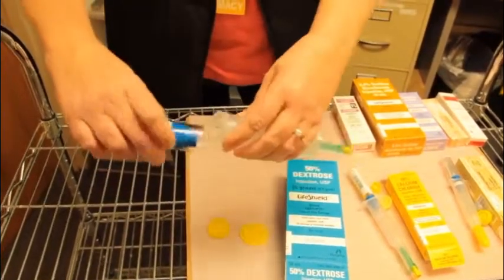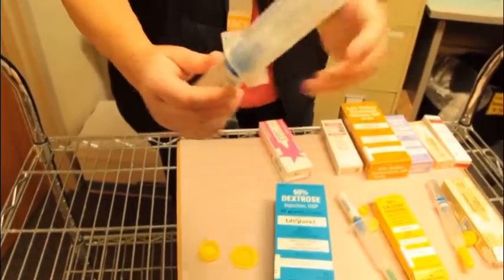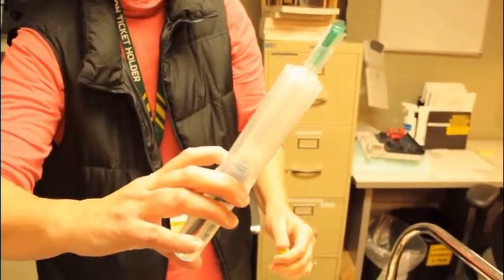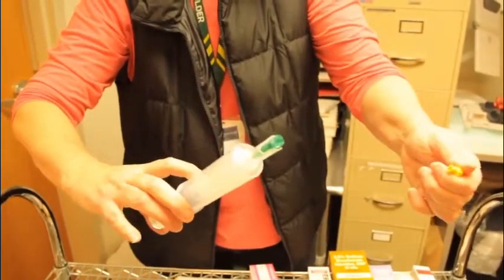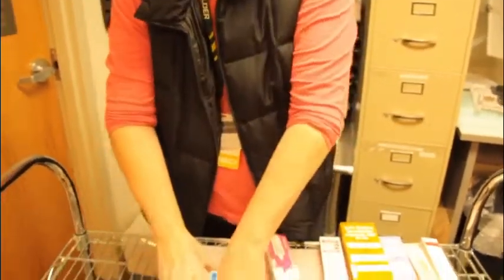You just flip the ends off and tighten the two pieces together. You remove the yellow cap, and then that just works like a regular syringe, and it'll push the liquid up. You'll see it come out a little bit, and then administer through a running IV site or an IV site already in place. And that's how the emergency syringes work. And that's it for this 30-minute course instruction. Now we are ready to do a high fidelity simulation on a mock code.